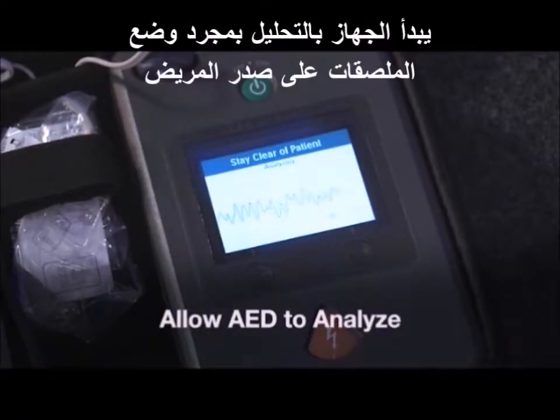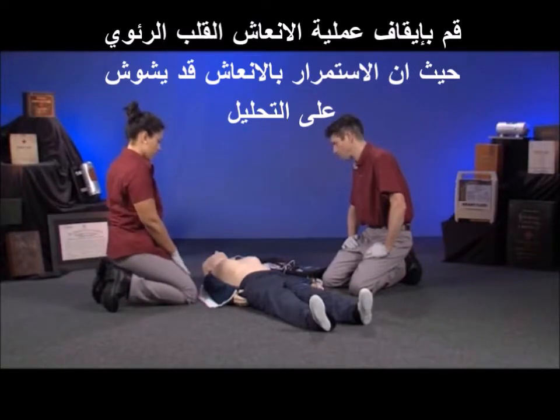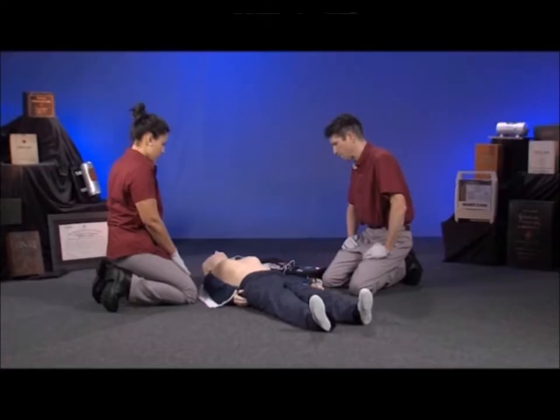Stay clear of patient. Analyzing. An AED automatically starts analyzing once the pads are in place. Stop CPR. Movement can interrupt the analysis. Be certain that no one is touching the person.